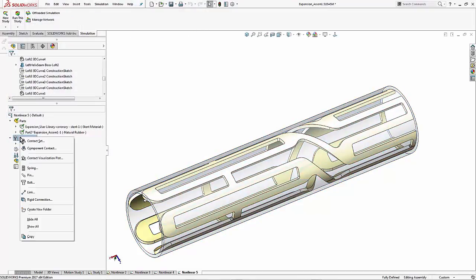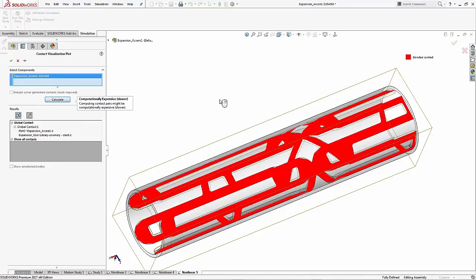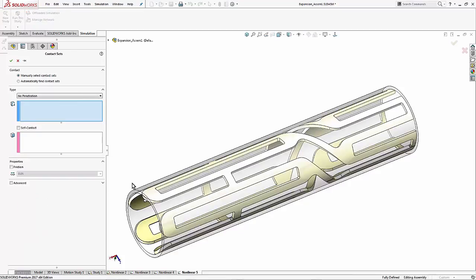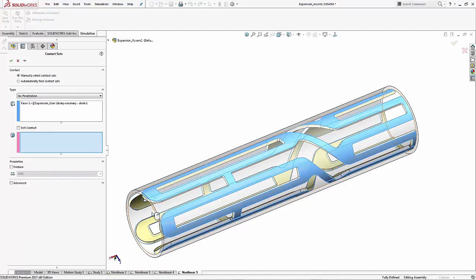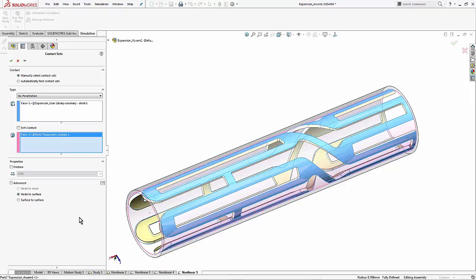Next area is connections. By default any touching face is going to be treated as bonded, which is perfectly welded. That's not going to work in this scenario. I do need them to slide against each other. So we would use the contact set between the outside face of the stent and the inside face of the cylinder. That's usually okay. But let's get into the advanced area. Node to surface is faster to solve but generally less accurate than surface to surface. However, in this scenario there's not a lot of major sliding. The nodes are going to stay basically lined up. So I'm okay with sticking with node to surface.